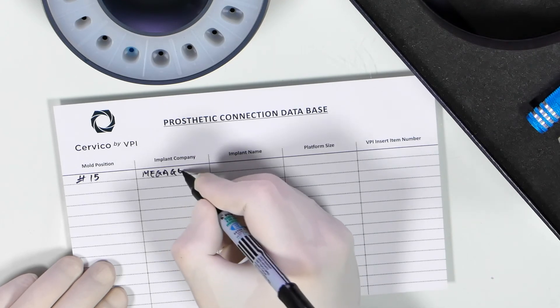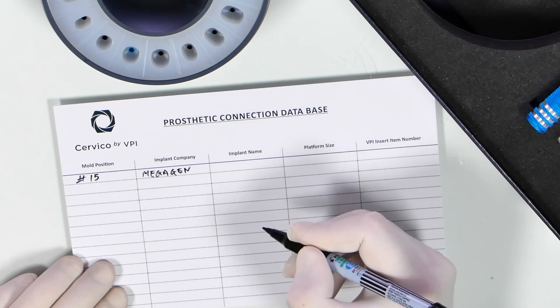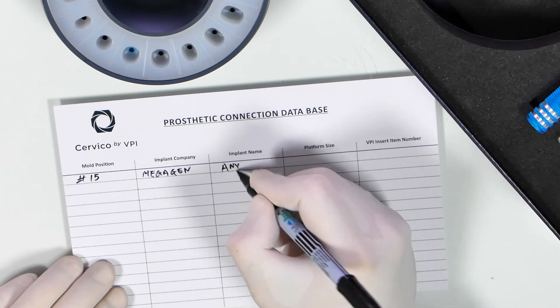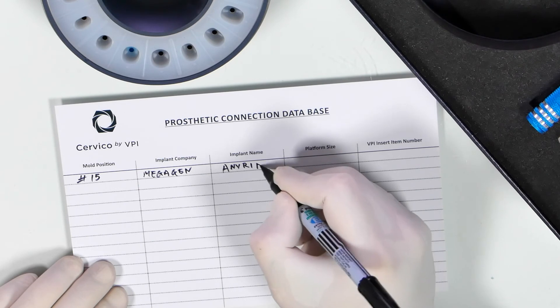Along with information regarding that insert that concerns the name of the implant company, the implant name, and the platform size.